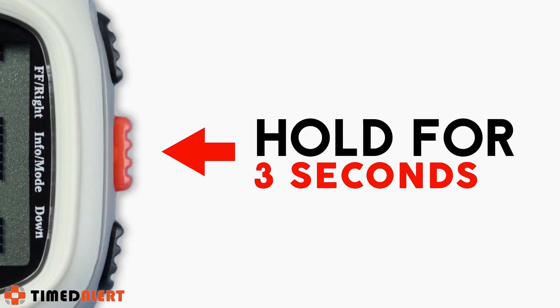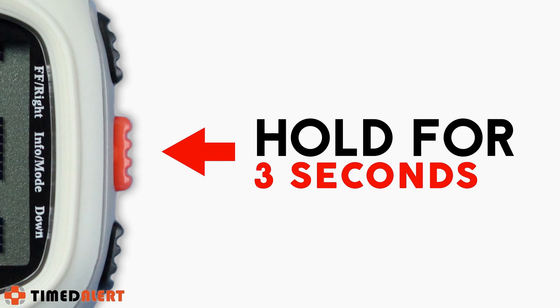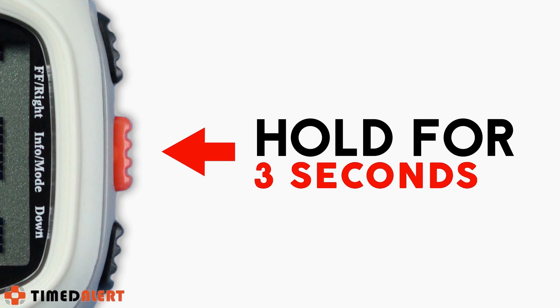The first step is to activate the watch by holding down the red center button on the right side of the watch for three seconds.